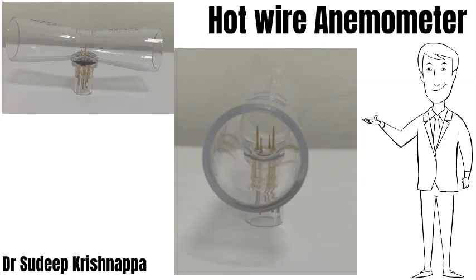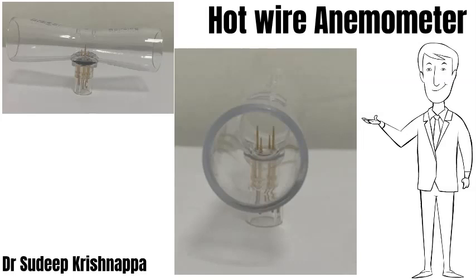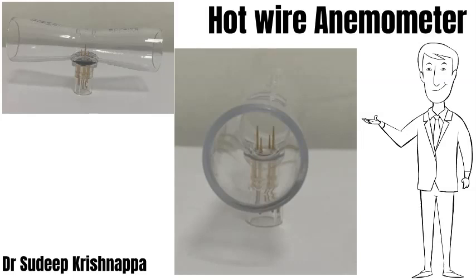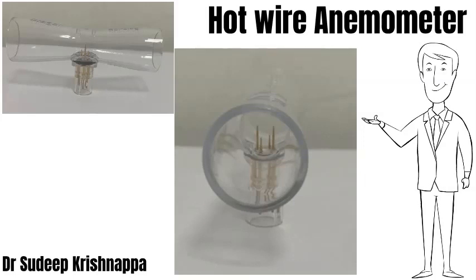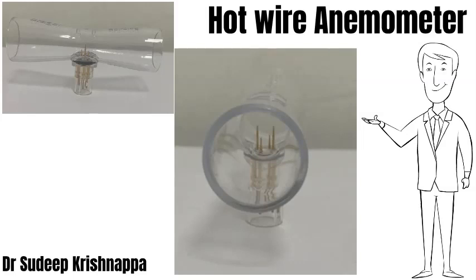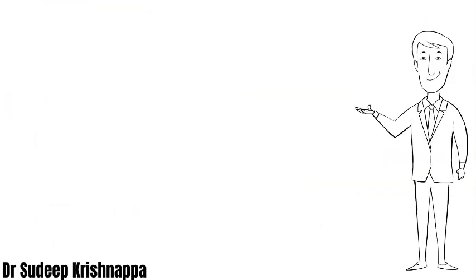The next picture shows an end-on view of the same device, showing certain needle-like structures projecting into the path of the gas flow. These needles are electrically heated. As gases flow over these needle-like structures, they pick up heat, causing a drop in temperature. The degree of drop in temperature corresponds to the amount of flow.